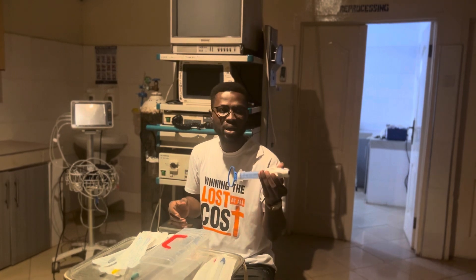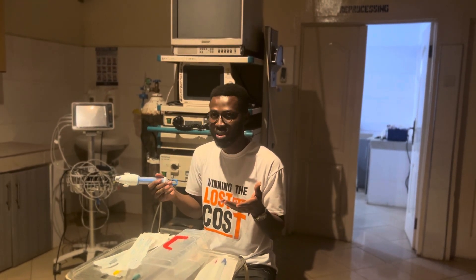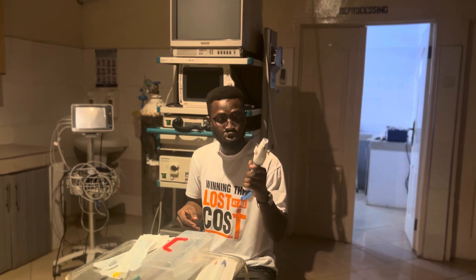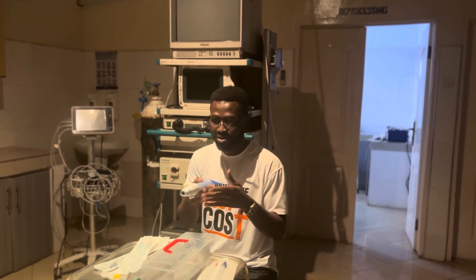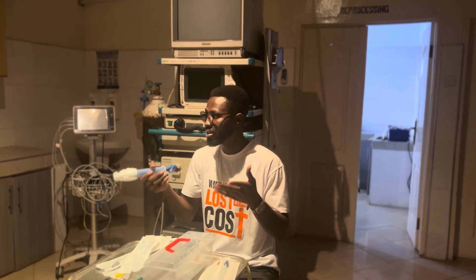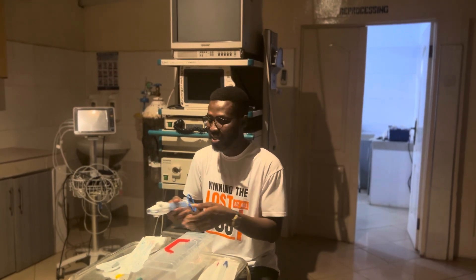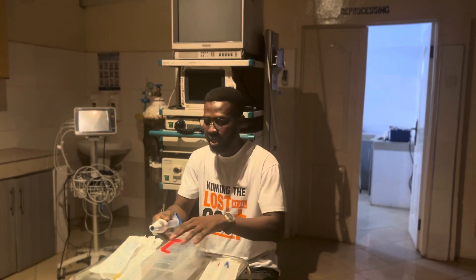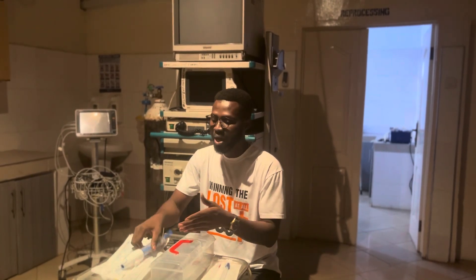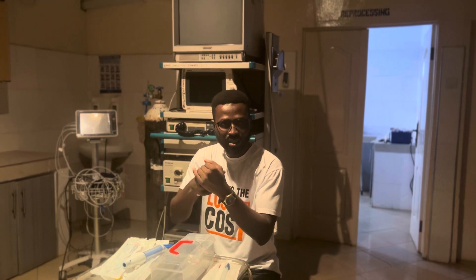Apart from the unmanned station, how else would you be tested regarding your knowledge and skill on this? Sometimes it would be a procedure station where the MVA kit is disassembled and you are asked to actually assemble it.